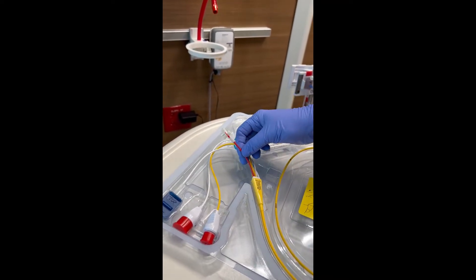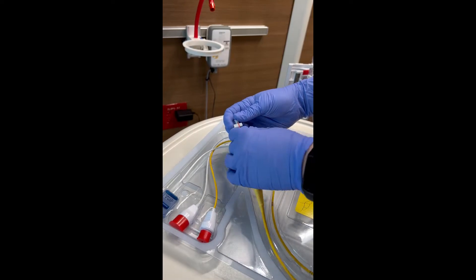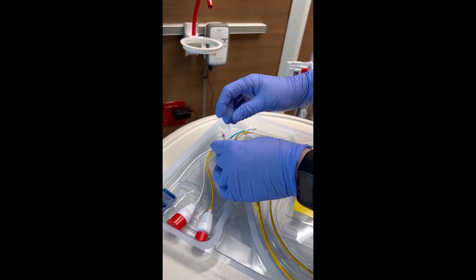The red port is your balloon port. It's got a lock on it that's locked and that's unlocked.